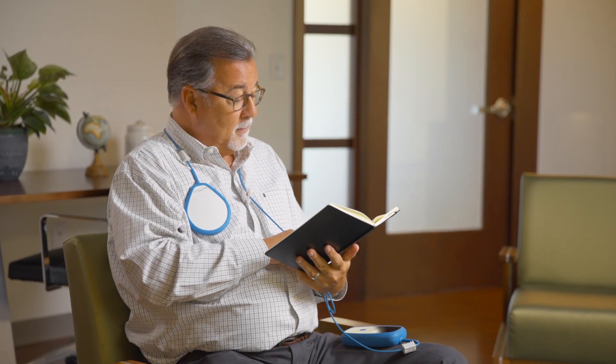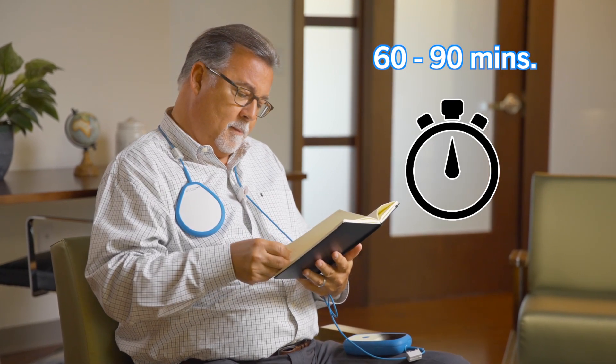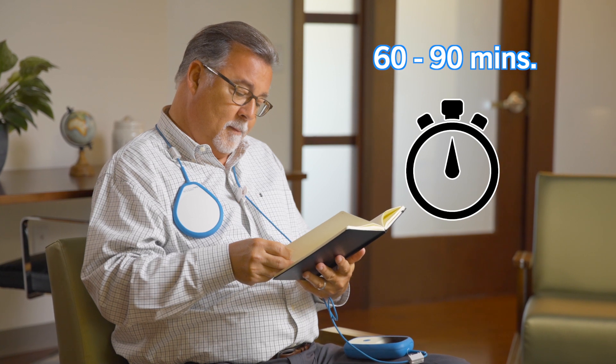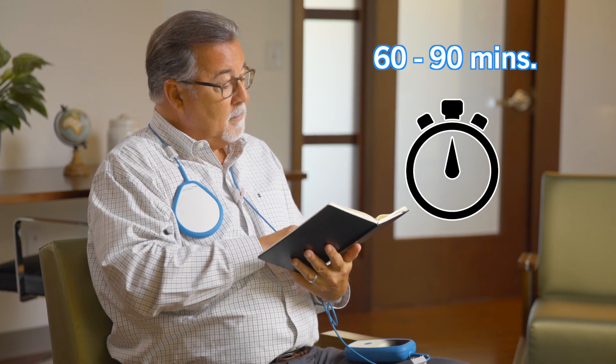Plan for your weekly charging sessions to last approximately 60 to 90 minutes. Your session may take more or less time. The longer you wait between charges, the longer it will take to charge your Optimizer.